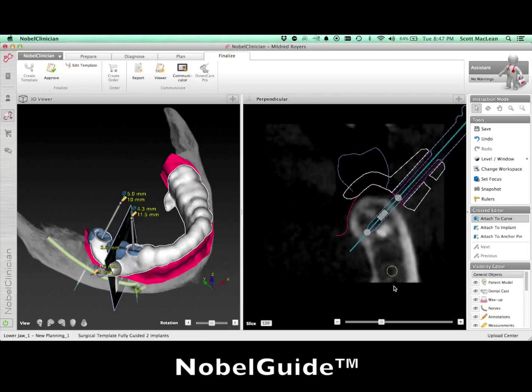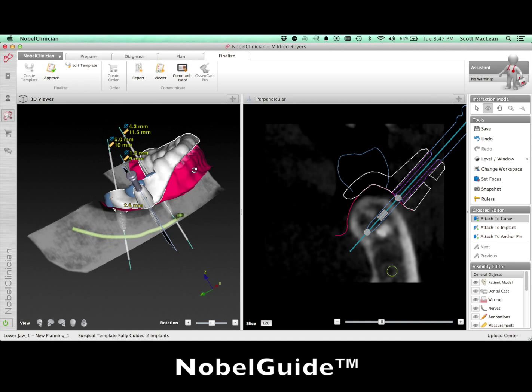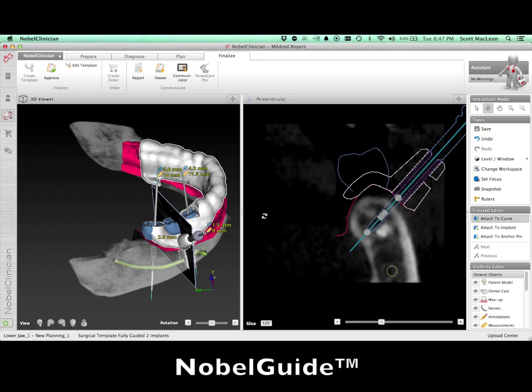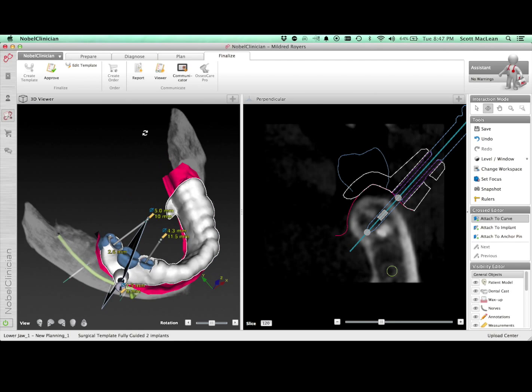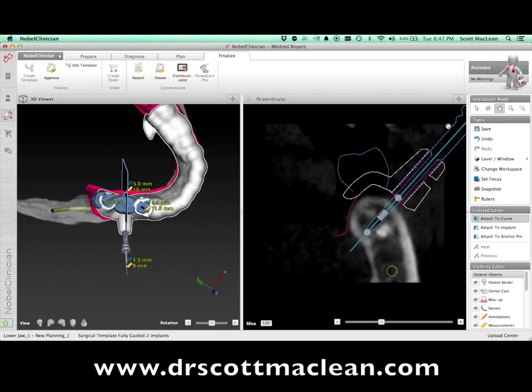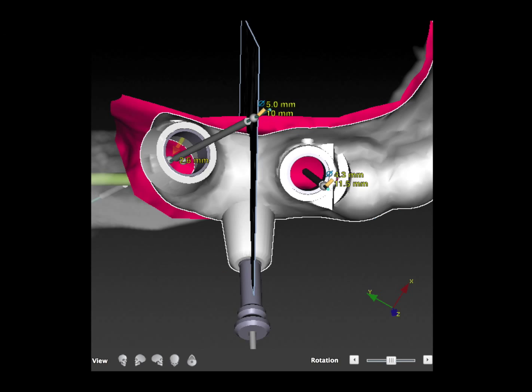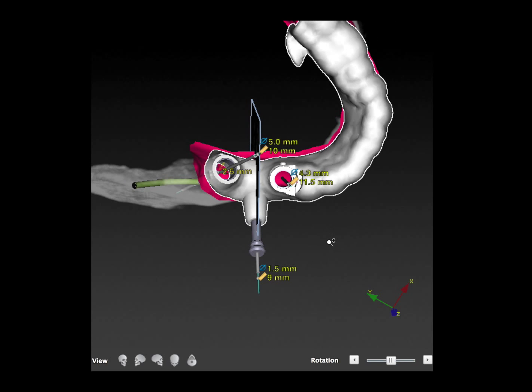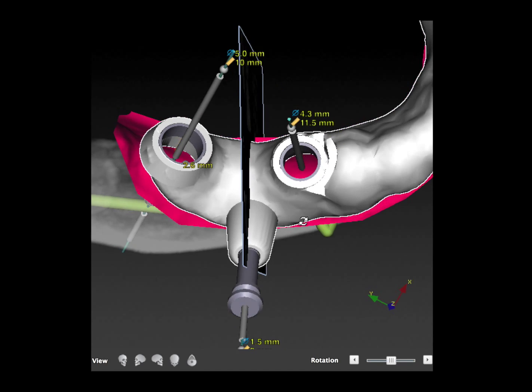You can see here the guide is designed, and we'll have a closer look at it. The anchor pin is going to hold it in position so that as I'm screwing implants down, it's not going to lift the guide up or turn it. You'll see circles over top of the wax-up teeth — these are the cylinders that are going to guide your drills. There are sleeves that fit into these cylinders that allow you to stay on track. The sleeves get gradually bigger and bigger, incorporating the position of the drill and the depth of the drill. The final sizes are marked on these particular cylinders, but smaller guides will fit into these cylinders to enable you to do the surgery.